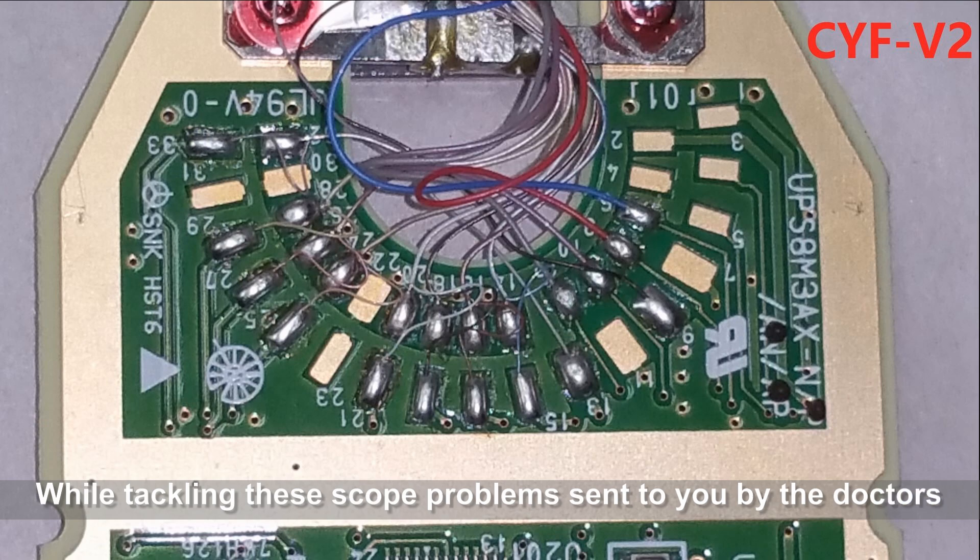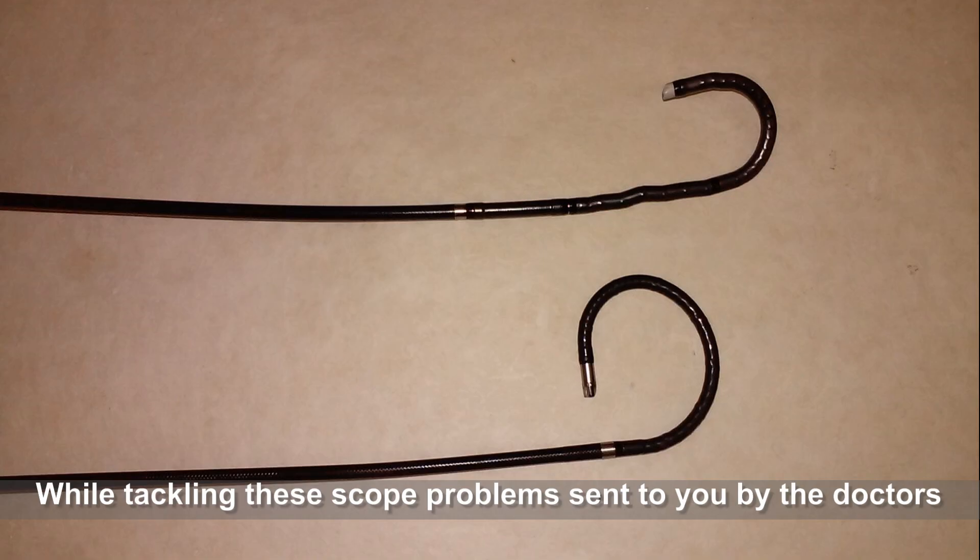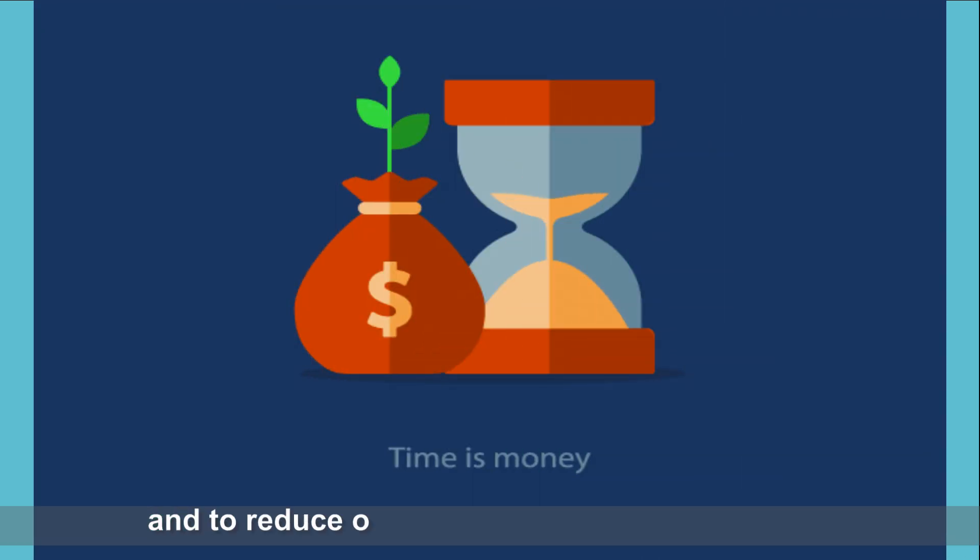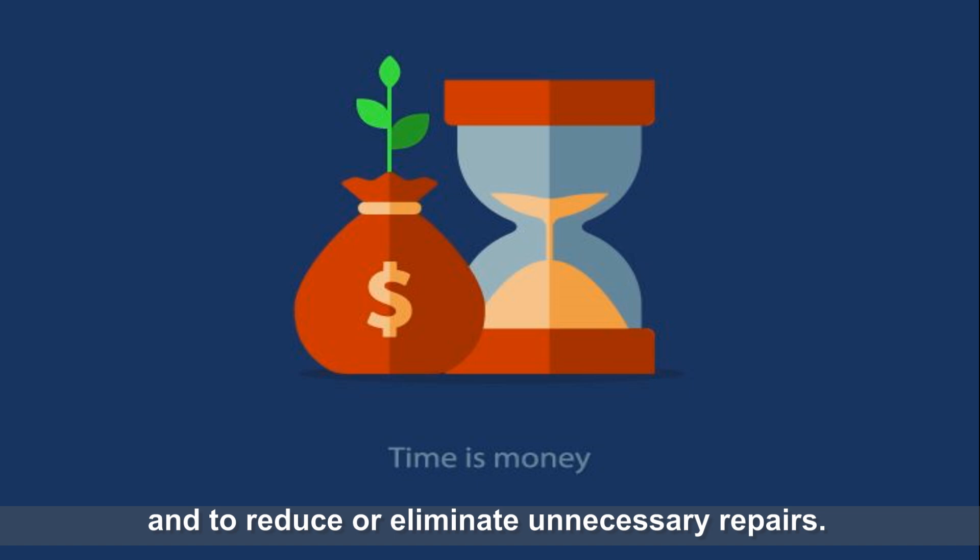In conclusion, while tackling these scope problems sent to you by the doctors, we need to think inside and outside of the box to solve these problems and to reduce or eliminate unnecessary repairs.